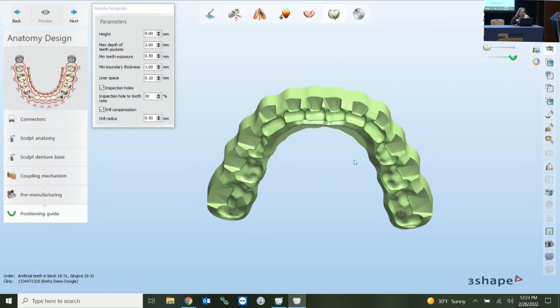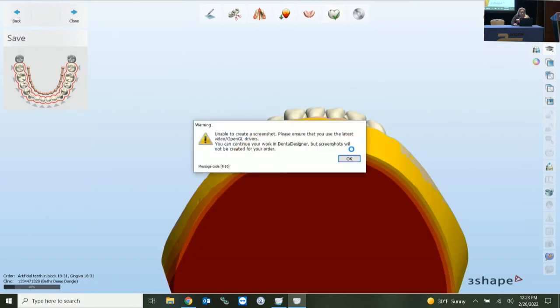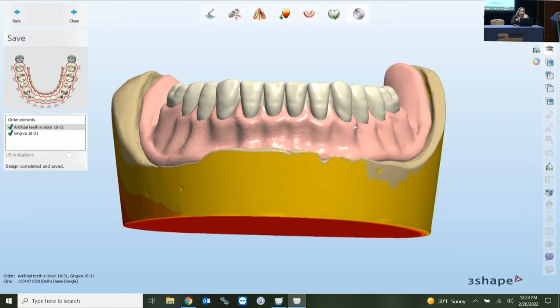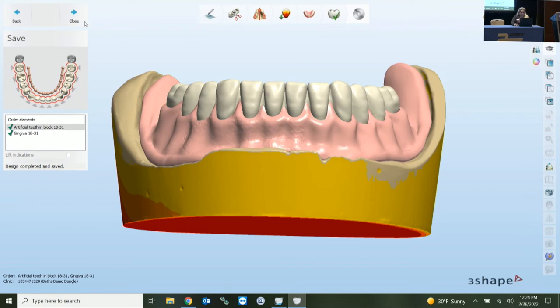A single arch is actually going to take more time from you as the designer, because with a double arch, your occlusal scheme is already programmed into the library. As long as you're not changing the individual placement of your teeth, your occlusal scheme is where it needs to be — making it less time overall. Your output sections — full roundhouse, two sections, posterior and anterior — are not limited. You set that in your order form. You can also go singles, such as when using carded teeth.